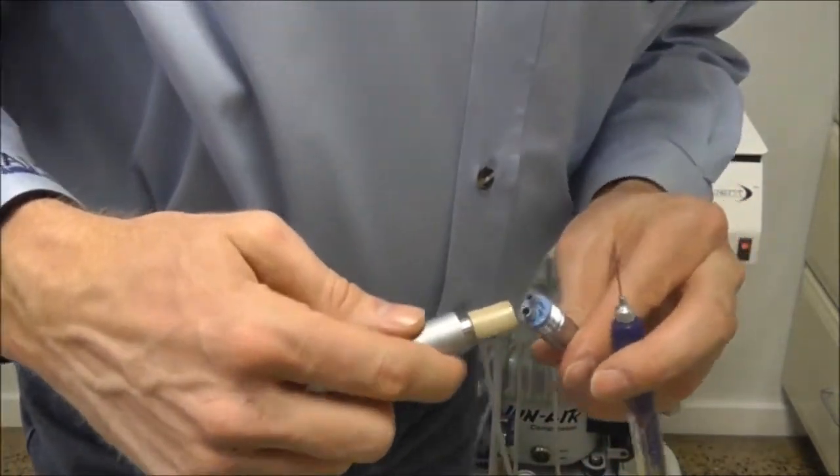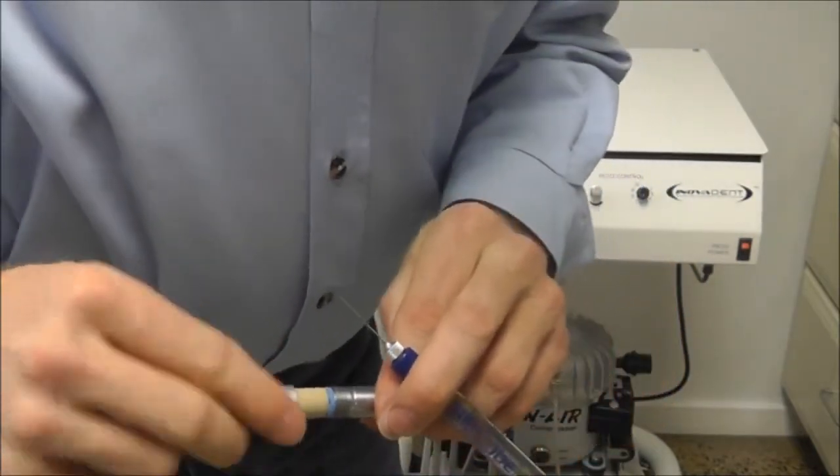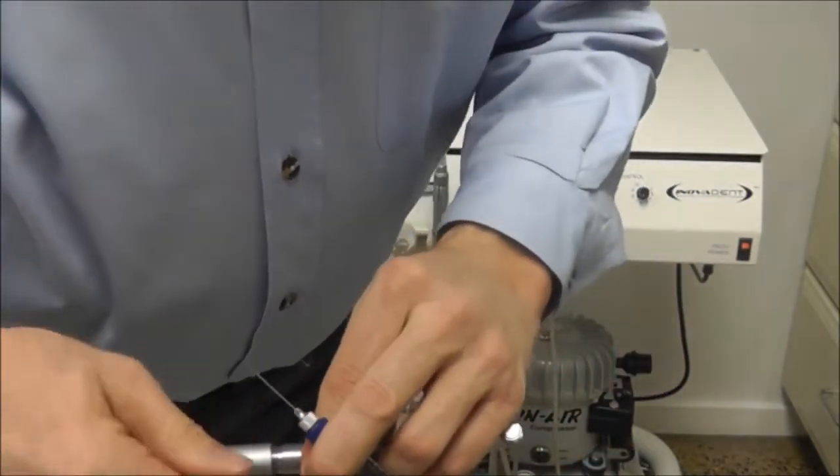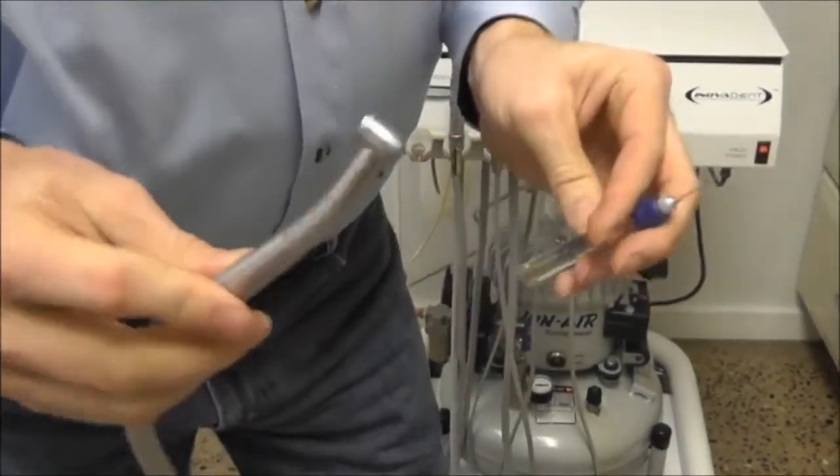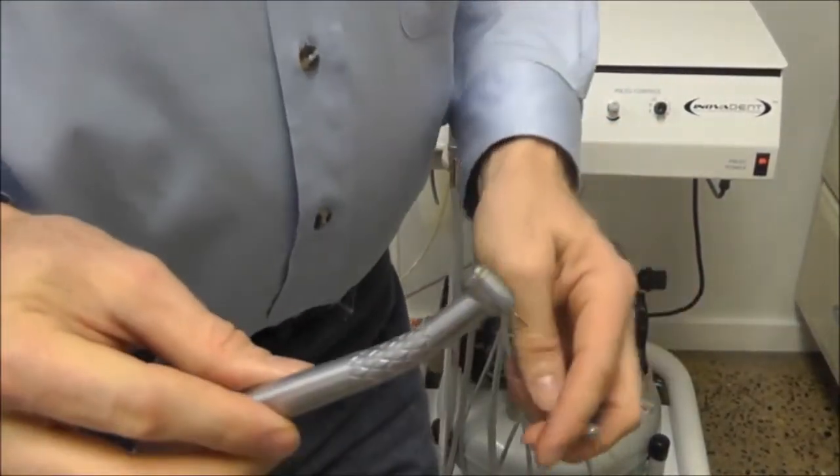Reconnect it back onto the dental cart and press down on the foot pedal to run that oil up into the turbine.